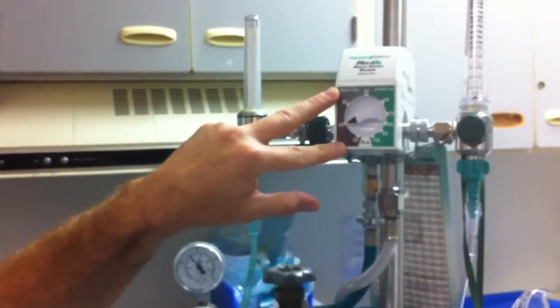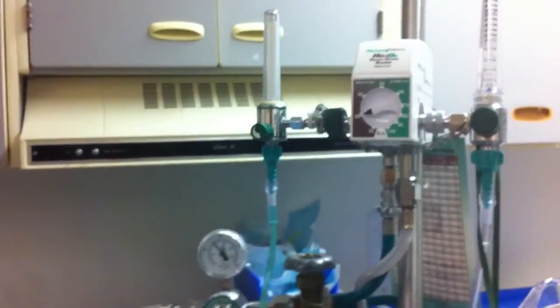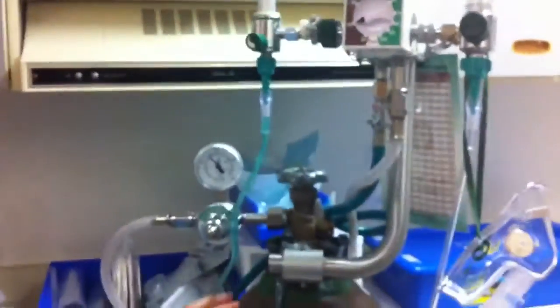It's a 70-30 mix, but keep in mind that what we're using is an 80-20 compressed gas tank. So as you increase that to 30, that then changes it to 70-30.